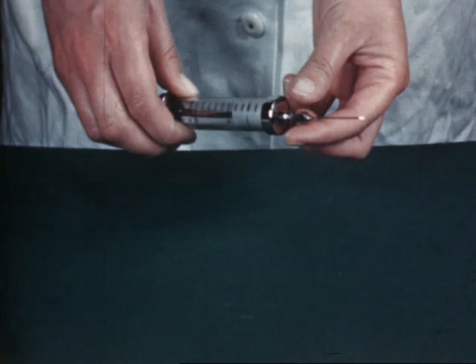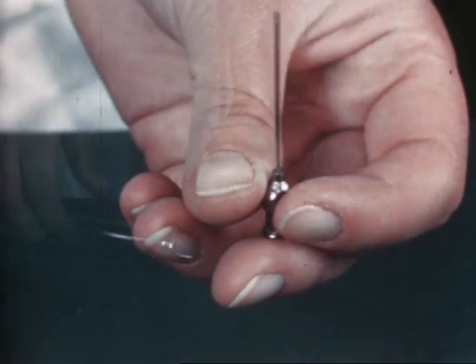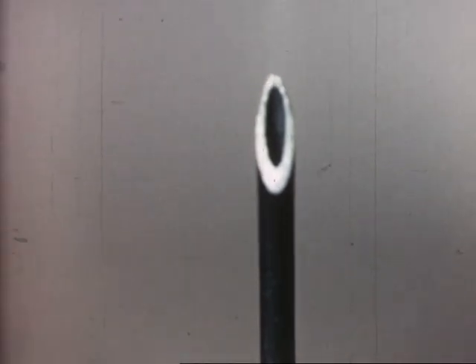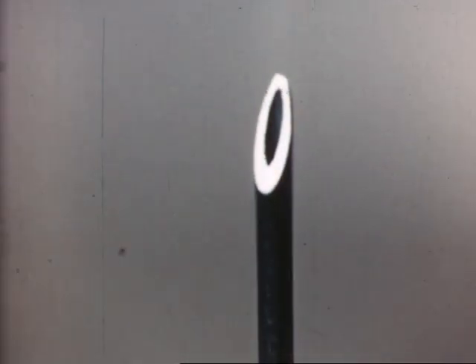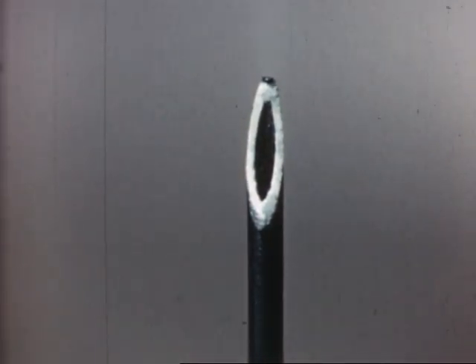Now let's see what can go wrong. One very common fault is a bad needle. Only if you magnify the point can you really appreciate the defects. This needle has a blunt point and a blunt cutting edge as well. Here's one with a nasty looking hook on it. Hooks, however small, tear the skin and vein and are particularly painful.